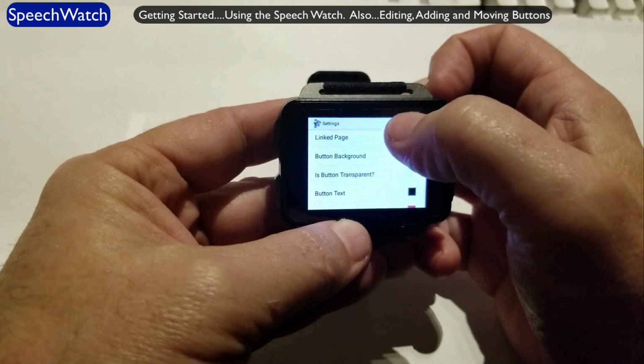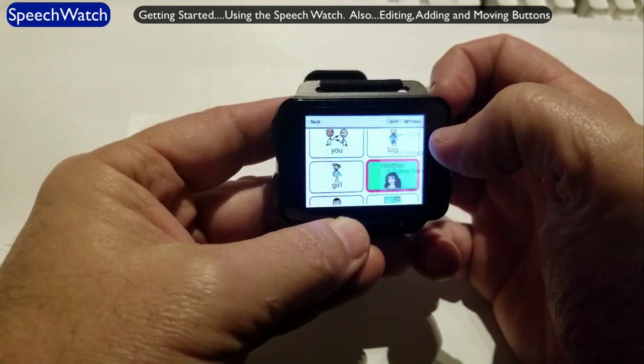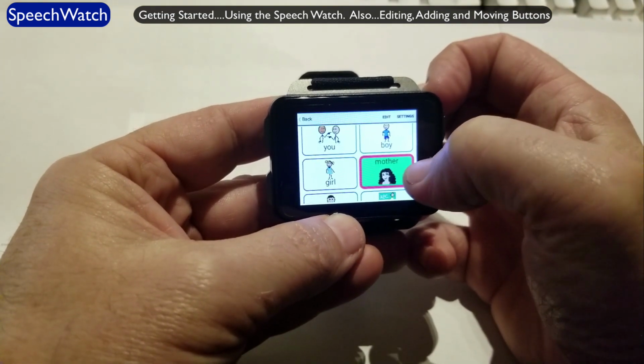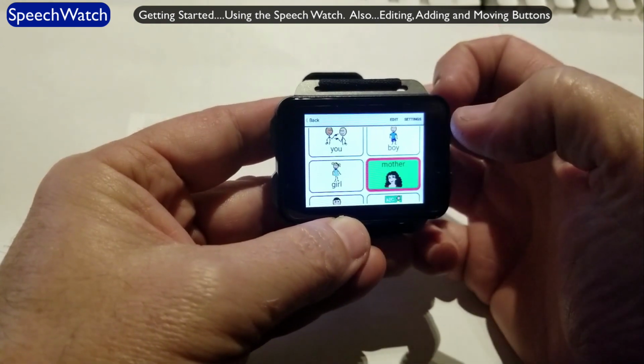Now I hit save. And there we have our button. How simple was that? And if I touch on it, Mother.